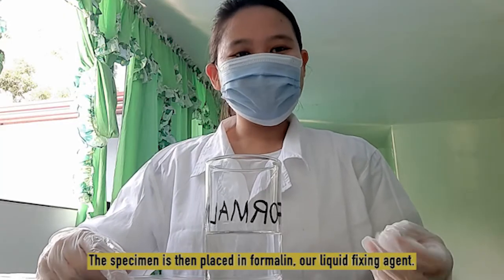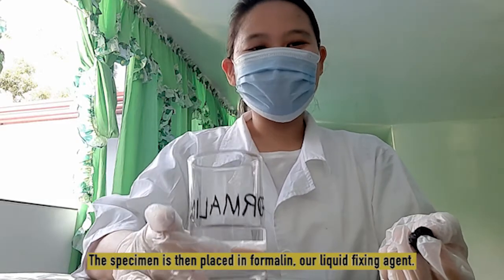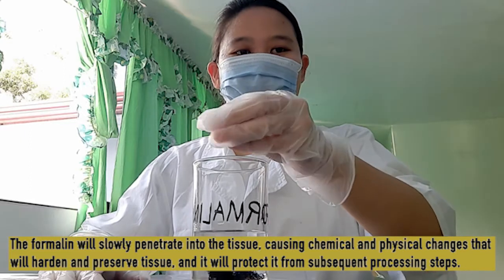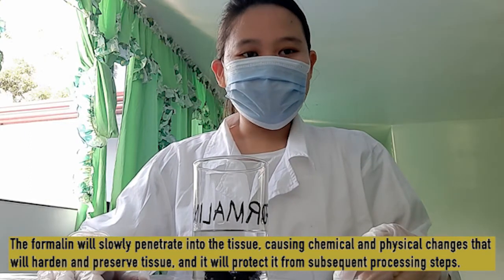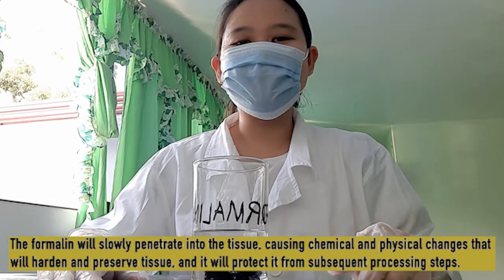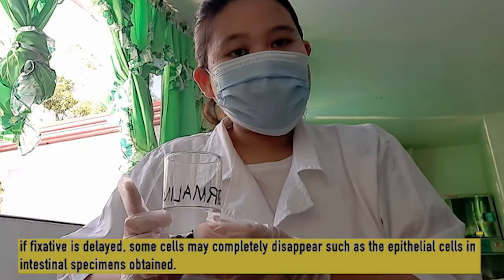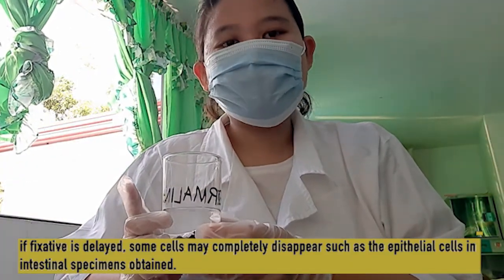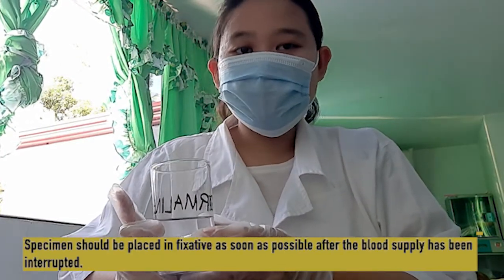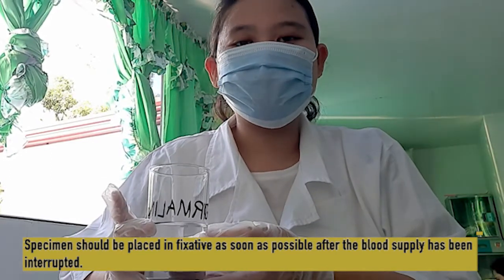The specimen is then placed in a liquid fixing agent. In this case, we will use formalin. This will slowly penetrate the tissue, causing chemical and physical changes that will harden and preserve the tissue and protect it against subsequent processing steps. If delayed, some cells may completely disappear, such as the epithelial cells in an intestinal specimen. So, we need to place the specimen in fixative as soon as possible after the blood supply has been interrupted.